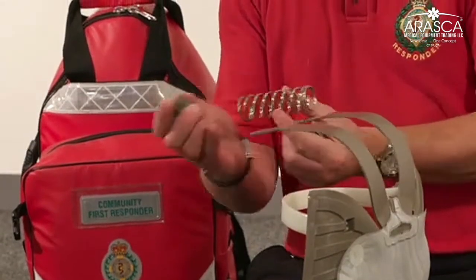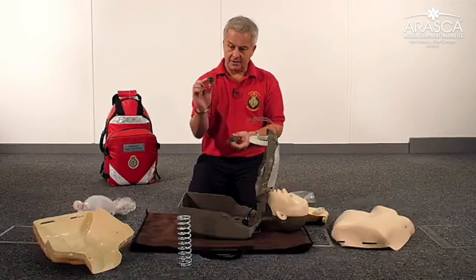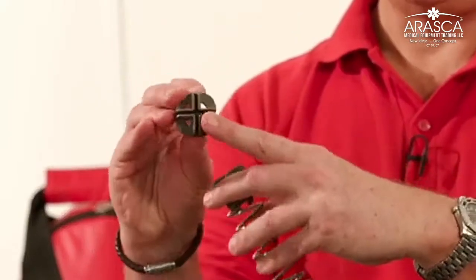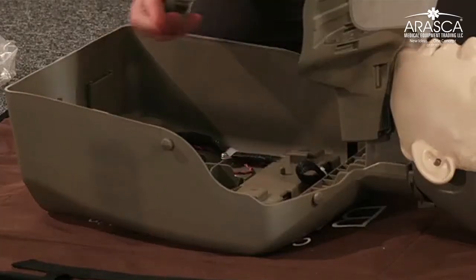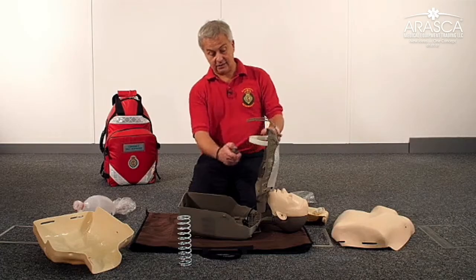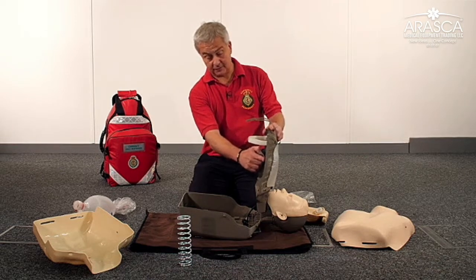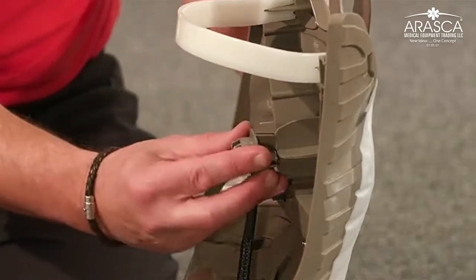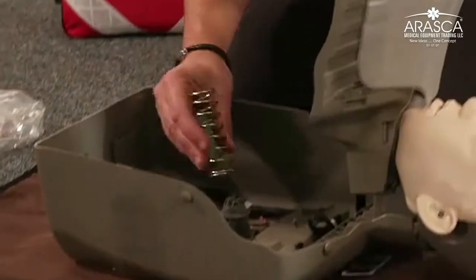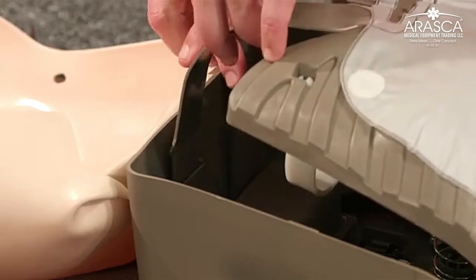In the pack there is a spring and two plastic parts. The plastic part has a circular side and a side representing a cross. The cross side fits into the bottom part of the mannequin in the correct position. There is another plastic moulding on the upper part where the ribs are, and again the cross locates into part of that moulding. The spring then goes over the circular part on both sides, and then you just shut the mannequin.